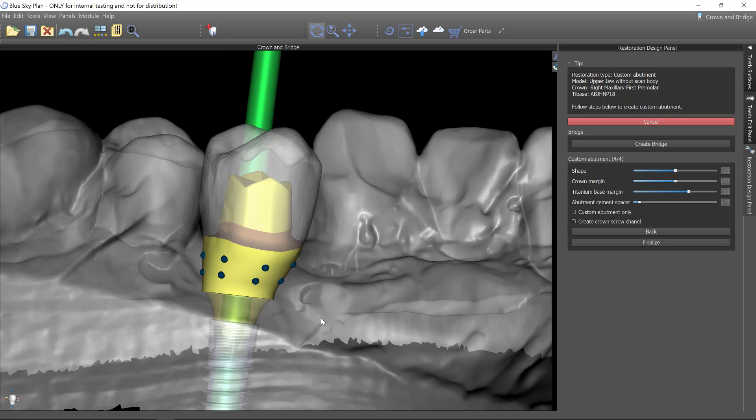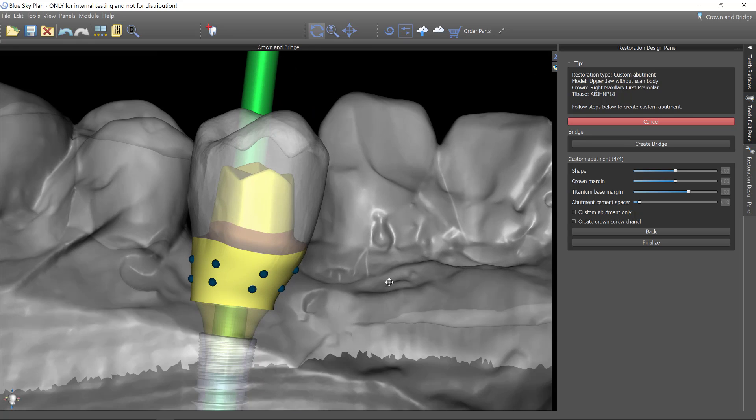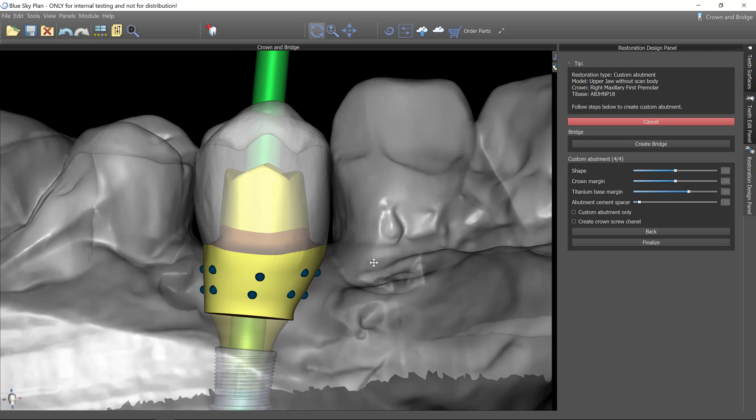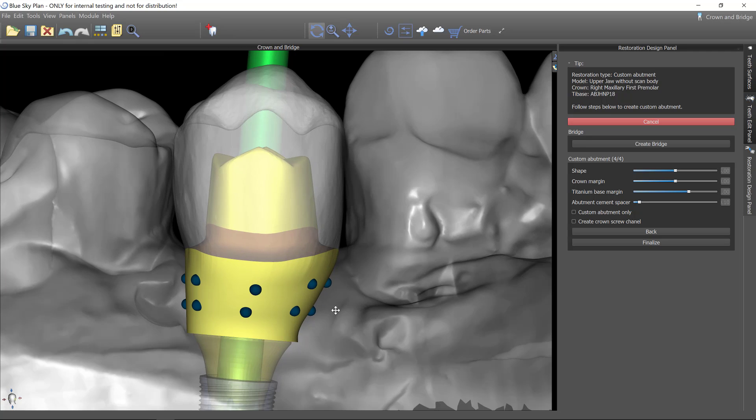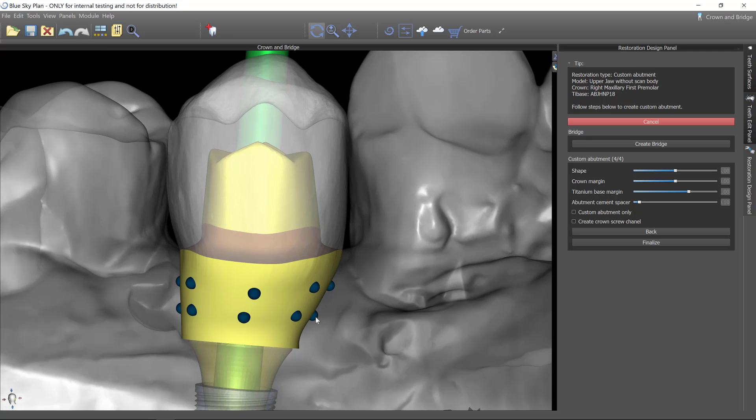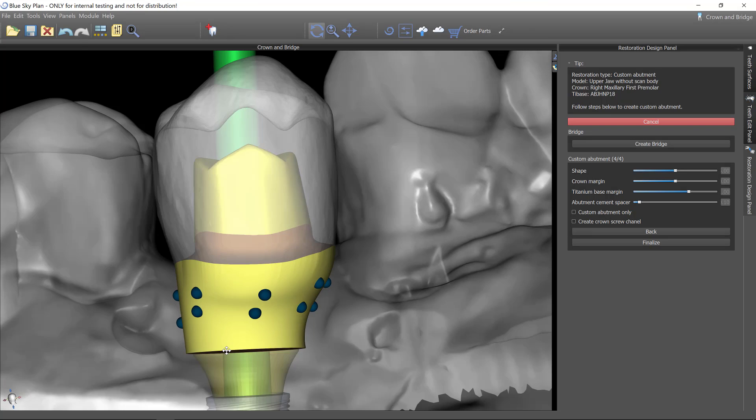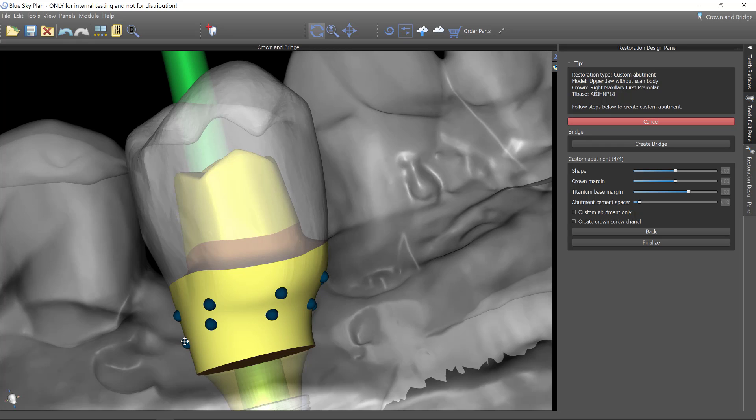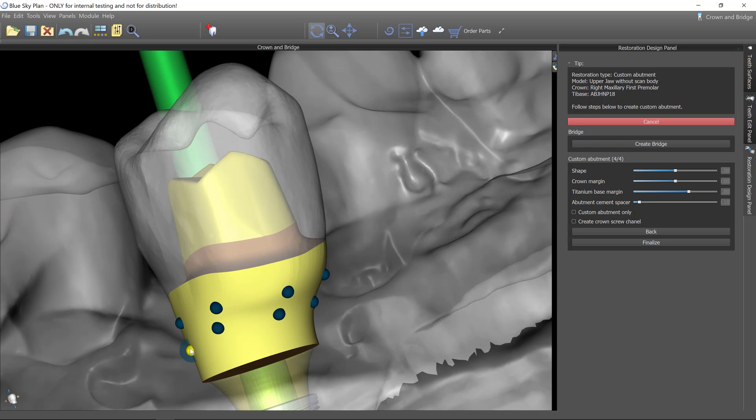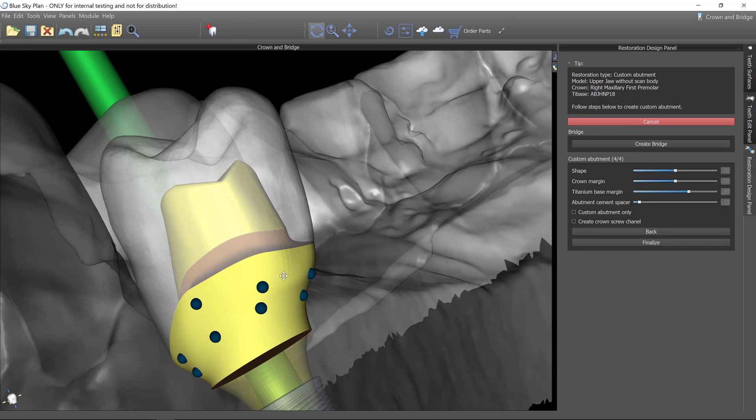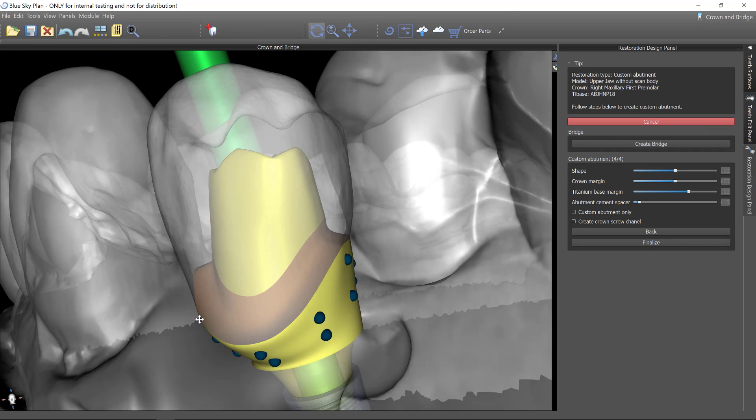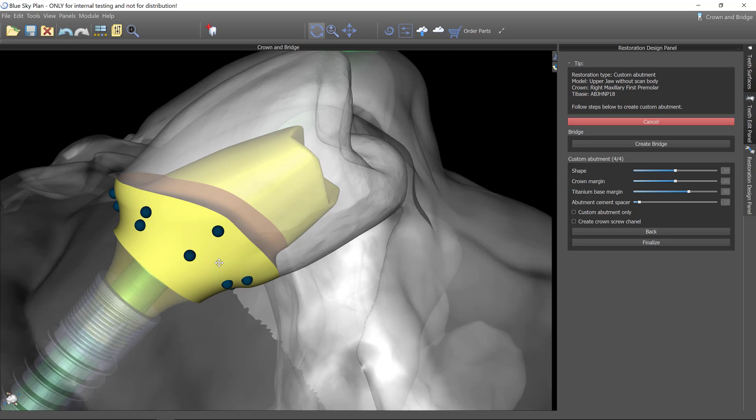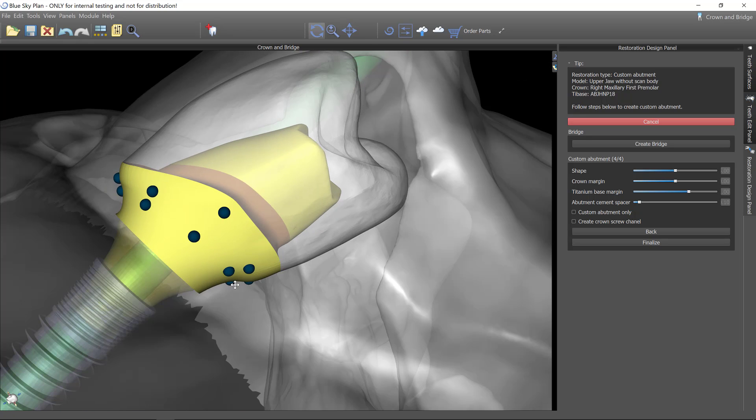And now you see how it connects everything together. And so here I can create more of a funnel shape to this, which I like to do. So I'm going to scoot this up. I like to keep it skinny as it gets up and out of the bone and the tissue and then create that trumpet shaped flare. So I don't have a lot of room to make that much skinnier. Okay.